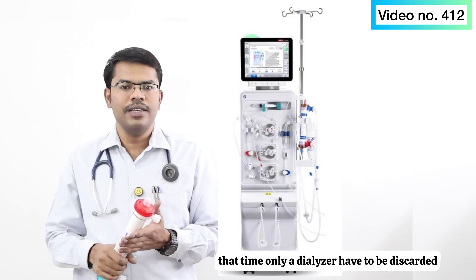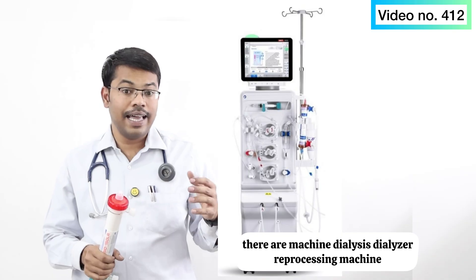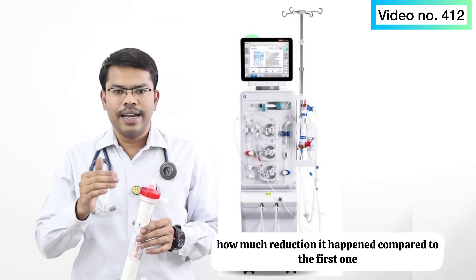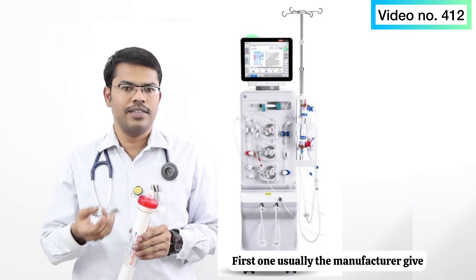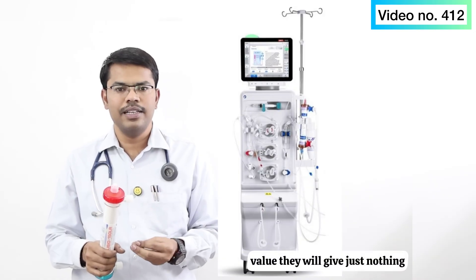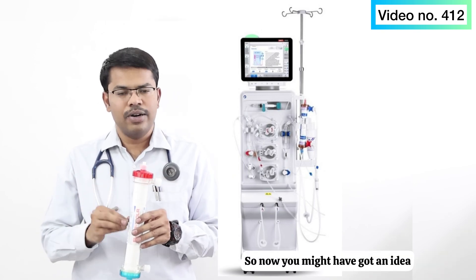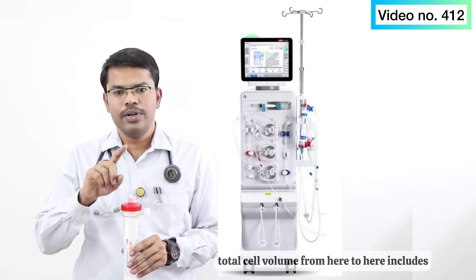When the fiber bundle volume drops significantly, the dialyzer may have to be discarded. Dialyzer reprocessing machines can measure how much reduction in fiber bundle volume has occurred compared to the first use. The manufacturer typically provides the initial volume — for example, 80 ml or 100 ml — representing the amount of blood inside the micro capillaries.